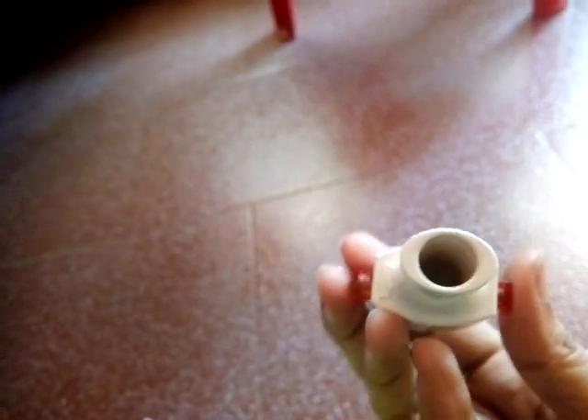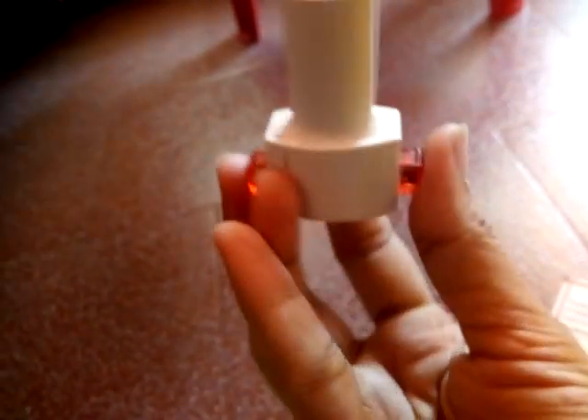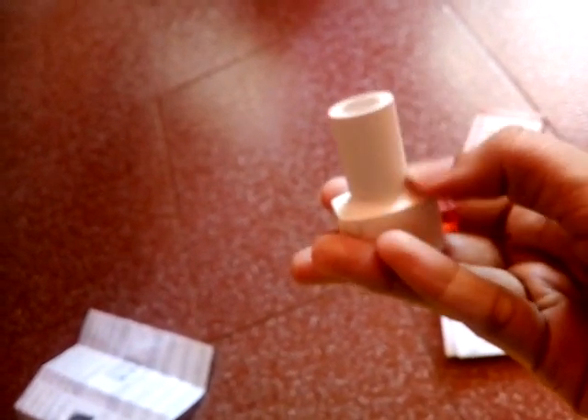After closing, we press these two side buttons. When we press these buttons, the capsule we put inside the inhaler will be ready for inhalation. This is the mouthpiece that we insert inside our mouth. We have to inhale at a very fast speed so that the medication goes directly into your lungs.